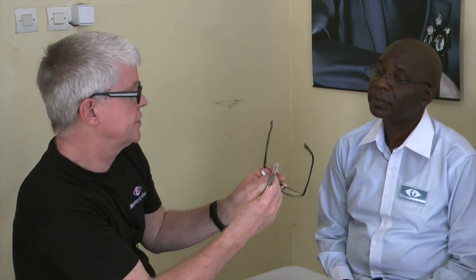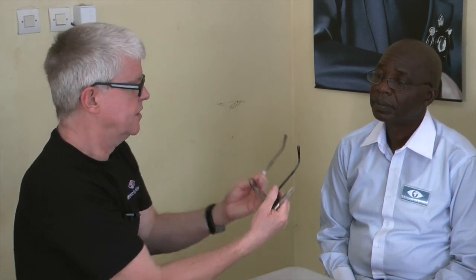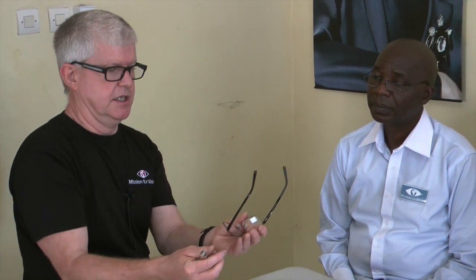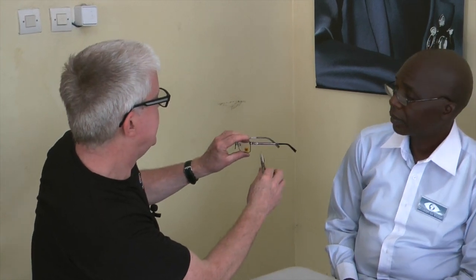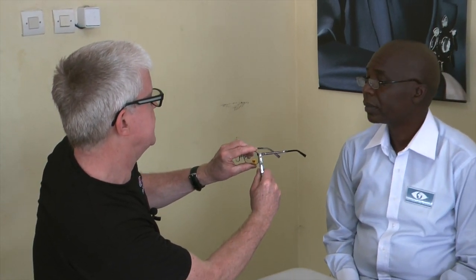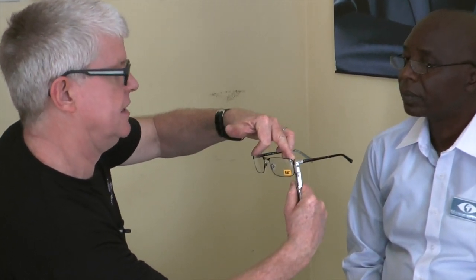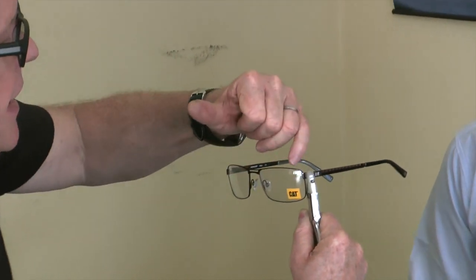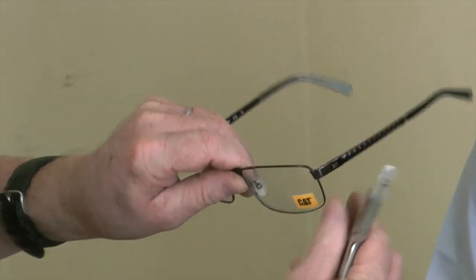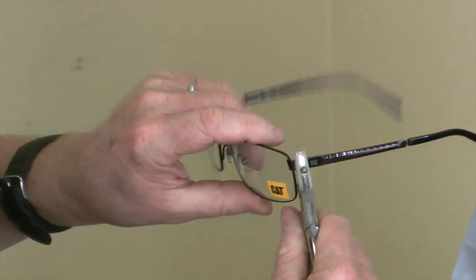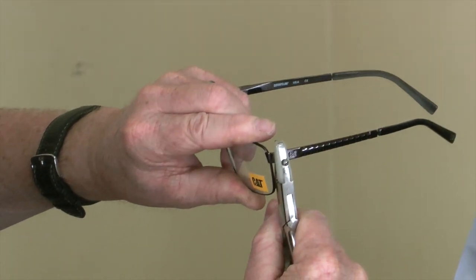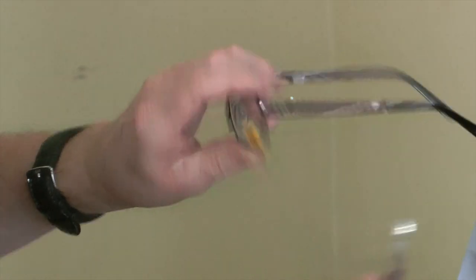We take the frame — this is the means of adjusting the head width. We just found that this frame is slightly narrower than Remy's head size. The way to adjust the head width, or the let-back angle, is to just use the pliers in that way — the metal is on the inside, the nylon is on the outside. It won't scratch the metal, and then you can either move the side out or move it in, depending on what you need to do for that patient.